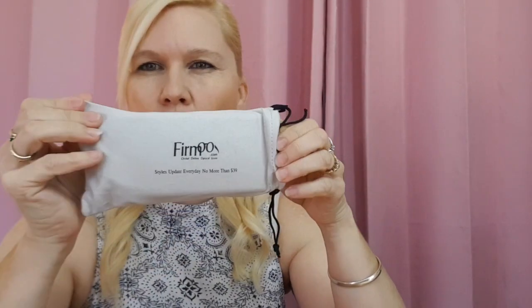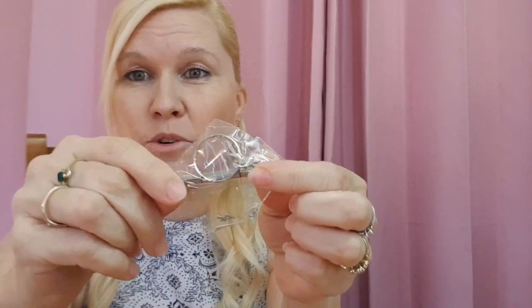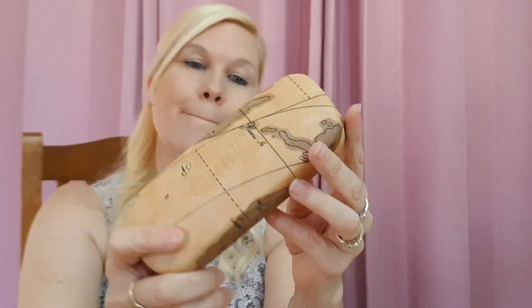Here we go — I've got them out of the packet and they've come in one of those soft cloth cases for easy carrying. There's a little packet in here too. There's a little tool you can use for screws — if one of your screws comes undone, you have a little screwdriver. They've even put spare screws in there, which I think is a great idea because it's really annoying when a screw falls out of a great pair of glasses.